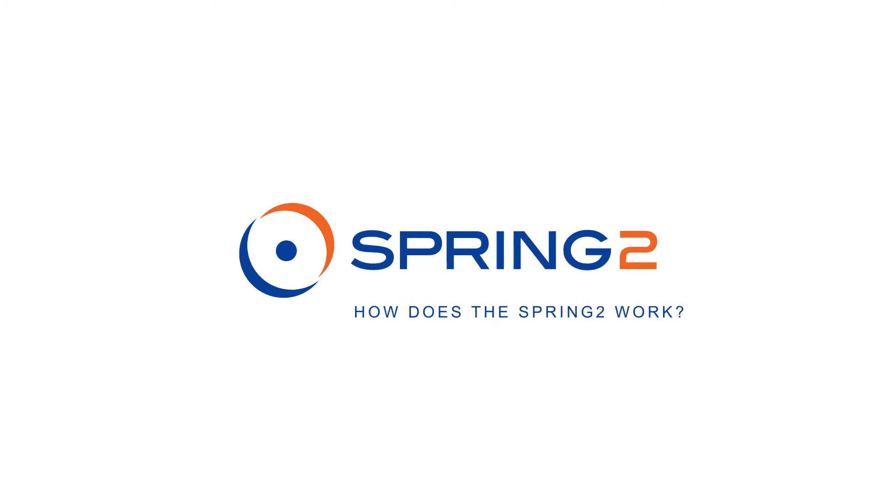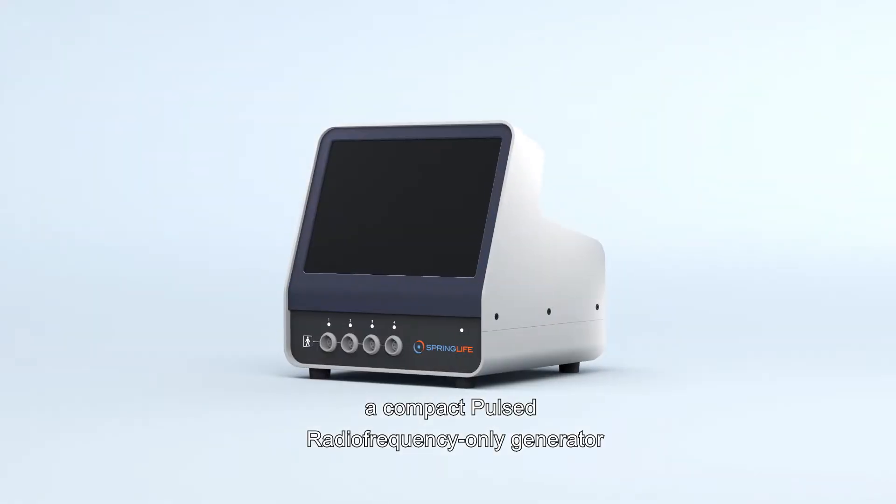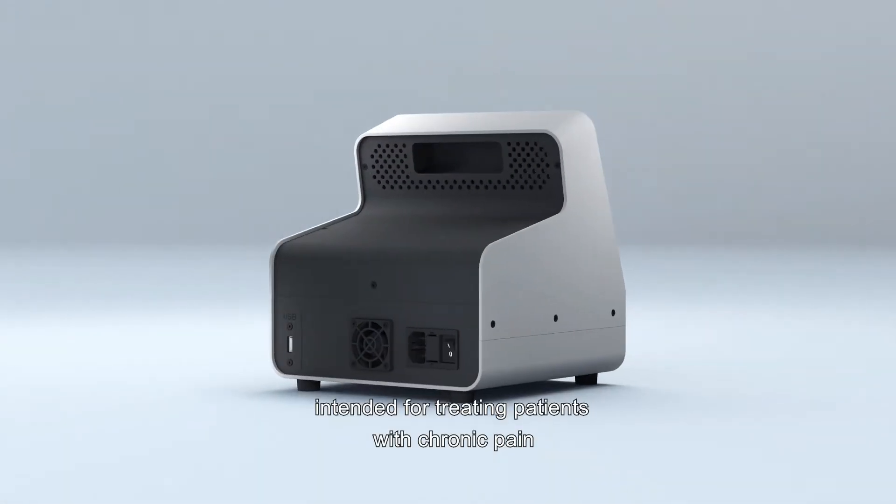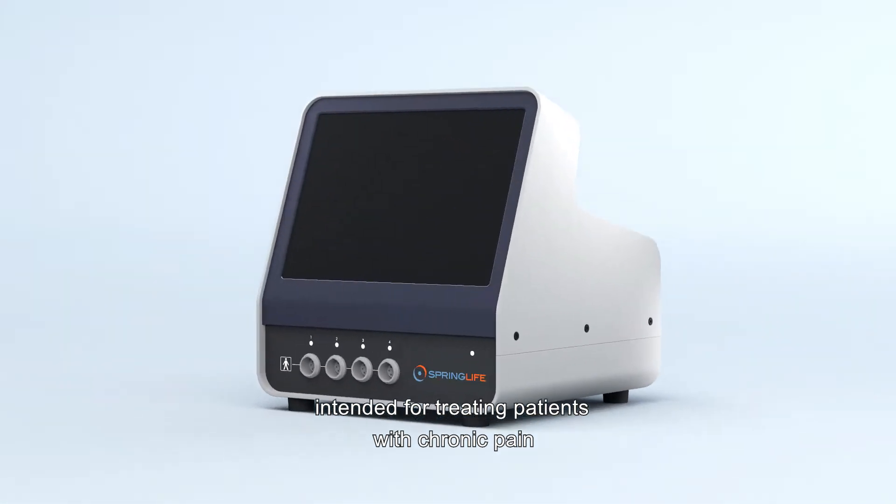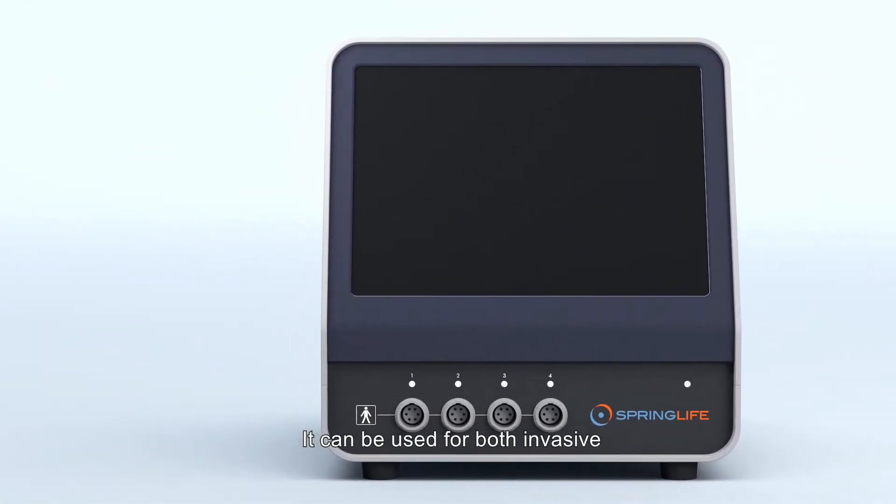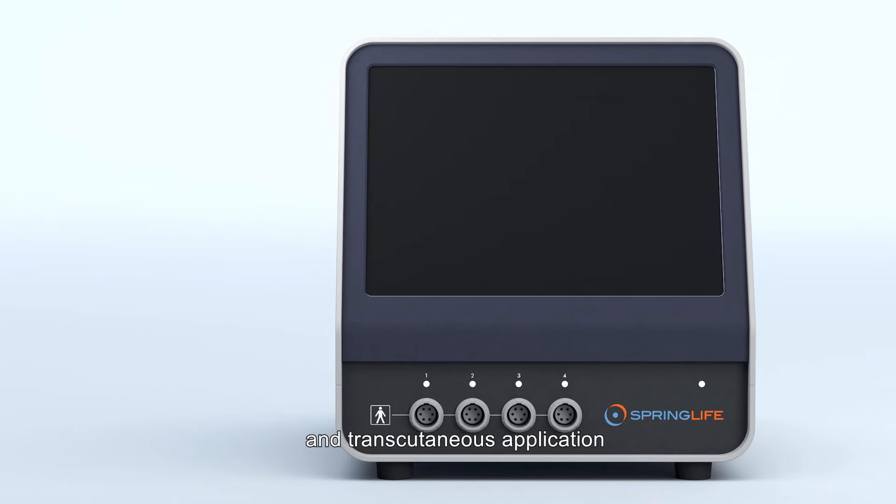The Spring 2, a compact pulsed radio frequency only generator intended for treating patients with chronic pain. It can be used for both invasive and transcutaneous application.